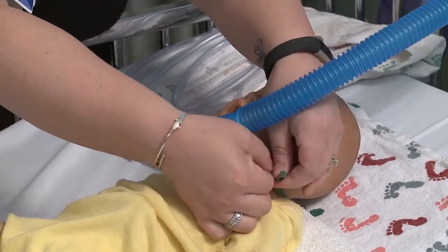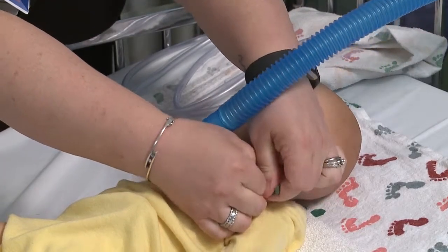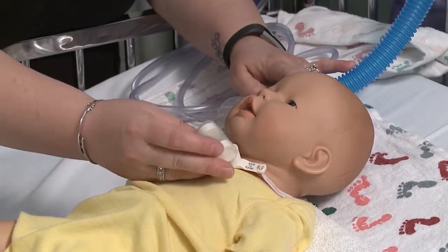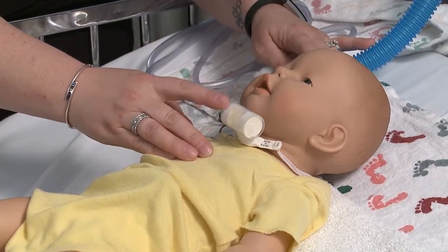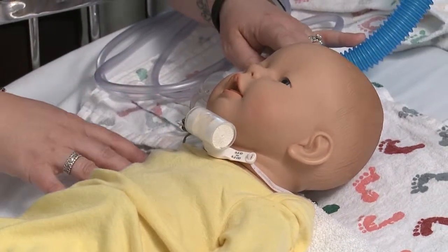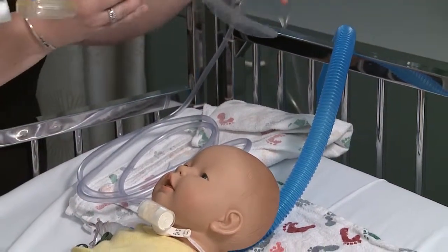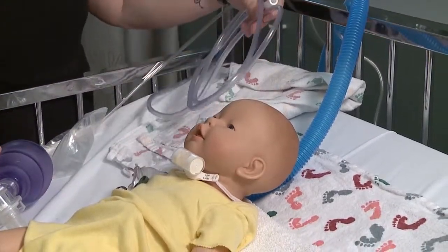If your patient does not need this, perhaps they may have what's called an artificial nose. That would be this apparatus. It slips right onto the end of the tracheostomy, and it serves to provide heat, humidity, and filtration for your patient. Other important things to have at bedside would be your ambu bag, hooked to oxygen with its mask attached, and suction equipment.